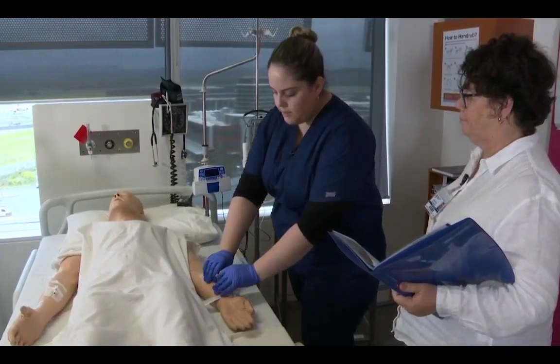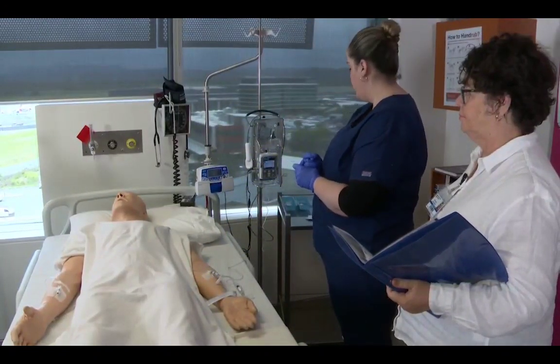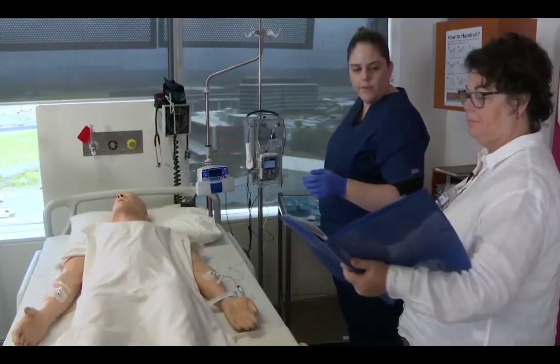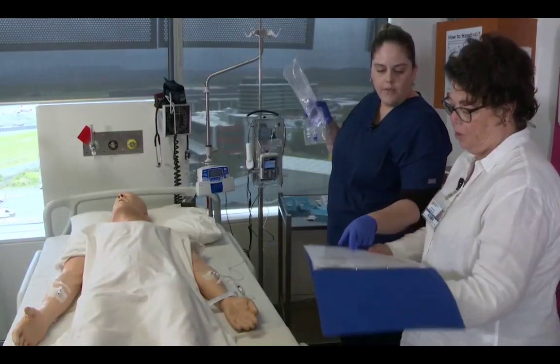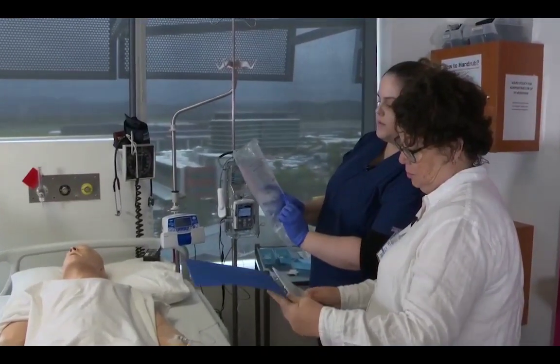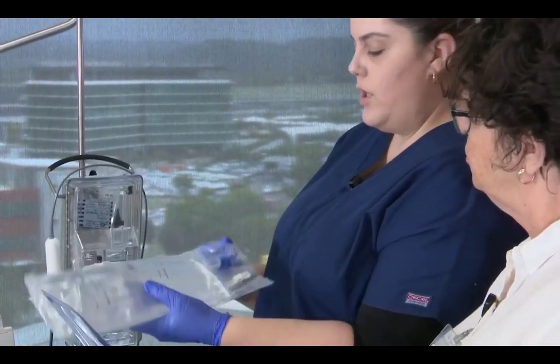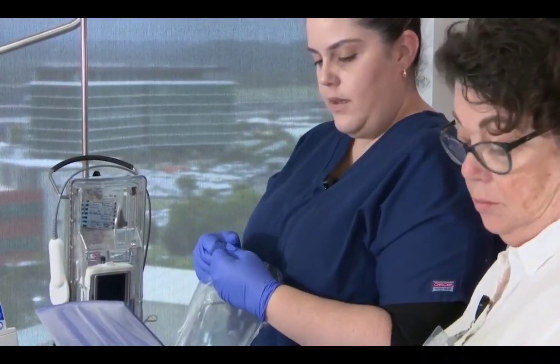And I'm going to unclamp this, and now I'm going to set up the IV line that runs with it. So for that, if you just want to flick to the IV therapy, sodium chloride, 1,000 mils, expires 2026. Yes. And this is my 3rd check of this at this point.